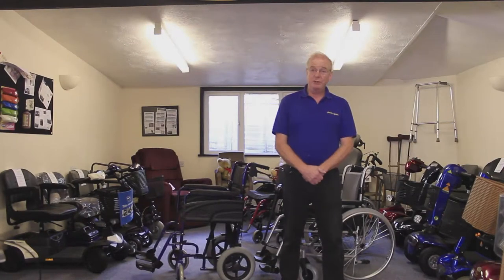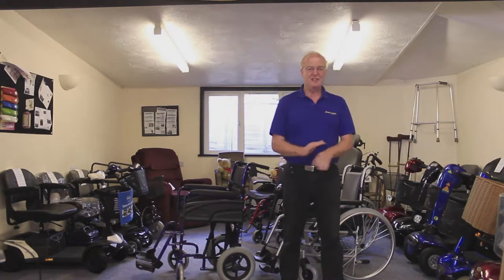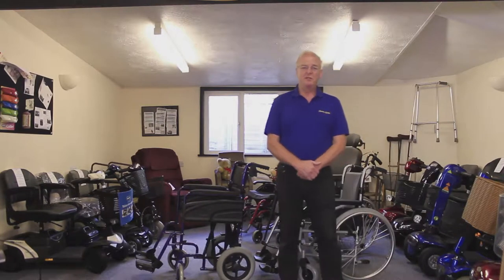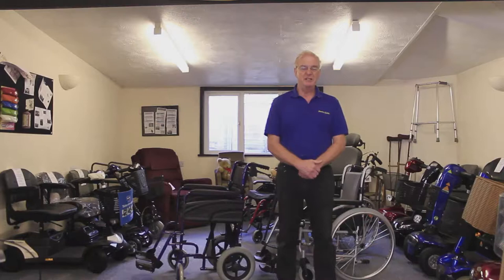This video is about manual wheelchairs. Two points to make before we even start. Number one, the health authority may well provide you with a manual wheelchair. This means that you get the chair free of charge and you get all the maintenance free of charge. Before you buy one it is worth talking to your GP — if you have a permanent need for a manual wheelchair you may be able to get one for free.